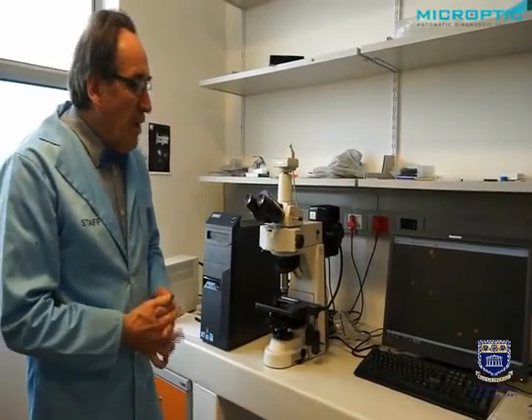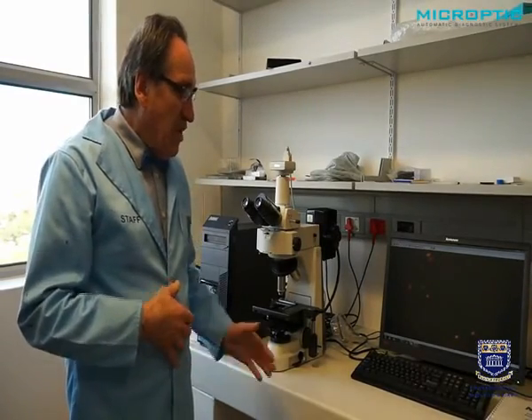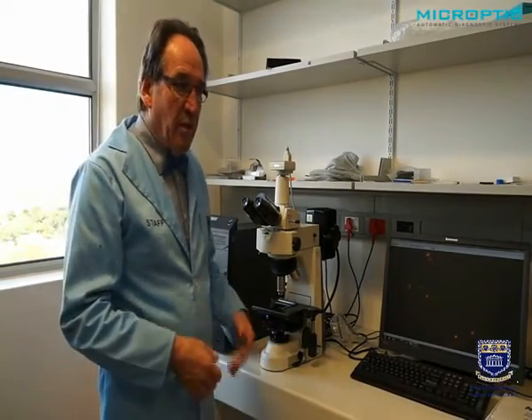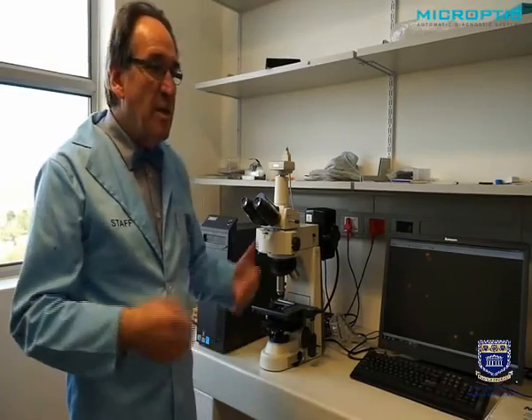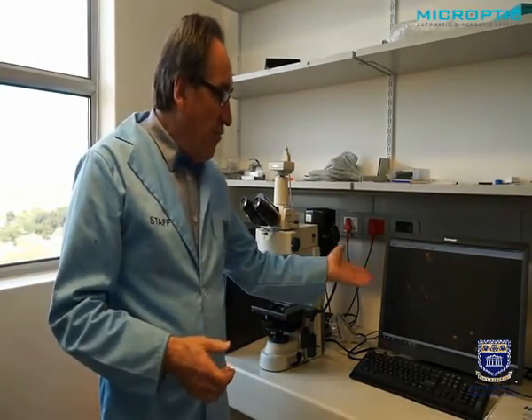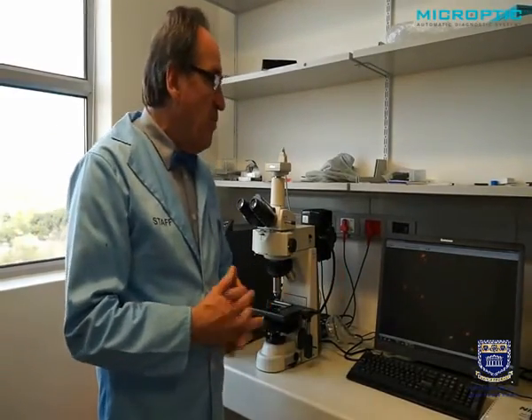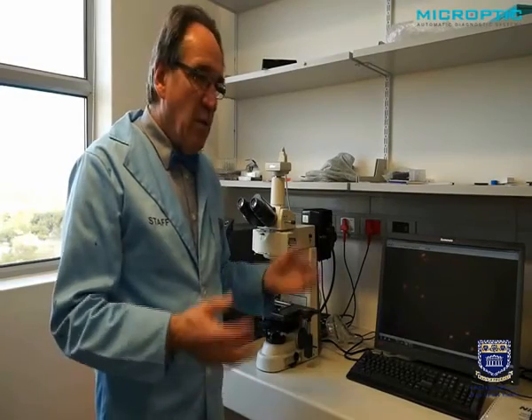Now one can do a lot of other fluorescence techniques with spermatozoa, which has nothing to do with vitality but shows other facets. For example, the acrosome reaction, and one can then have a very nice image of a fluorescent sperm, of fluorescent acrosomes, and one can capture that in the sperm class analyzer's cell counter and analyze it there semi-quantitatively.